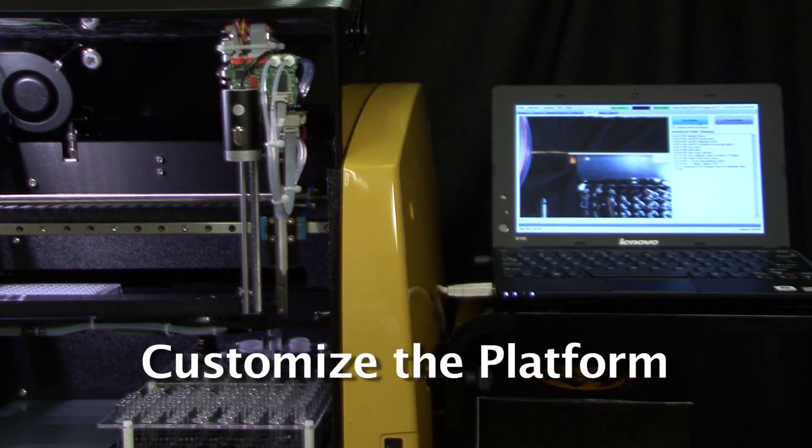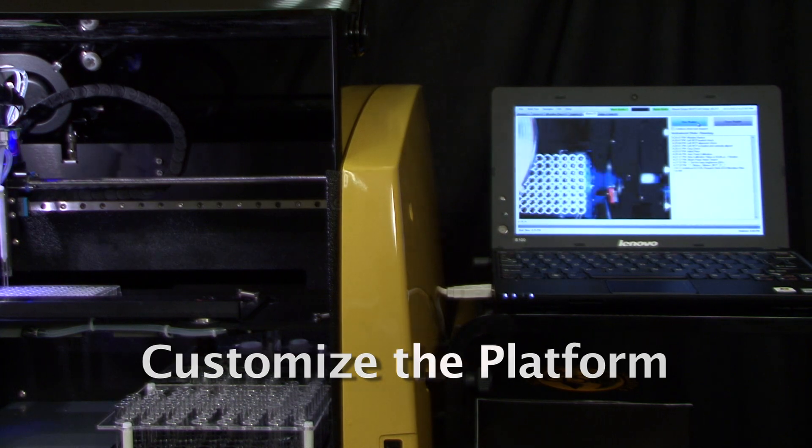Customize the platform to fit your laboratory needs. The Thunderbolt uses intuitive, user-friendly software with many built-in safeguards, such as the reagent loading wizard, liquid detection system, and positive sample identification, that prevent user errors and allow technicians to quickly master machine operation.